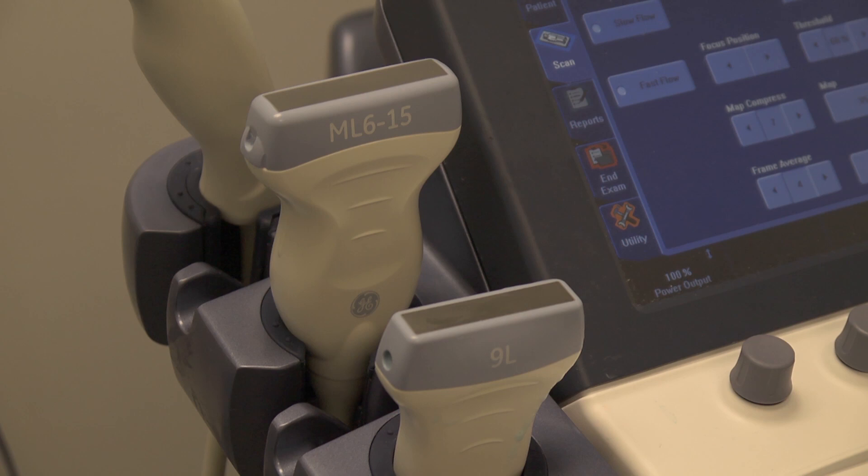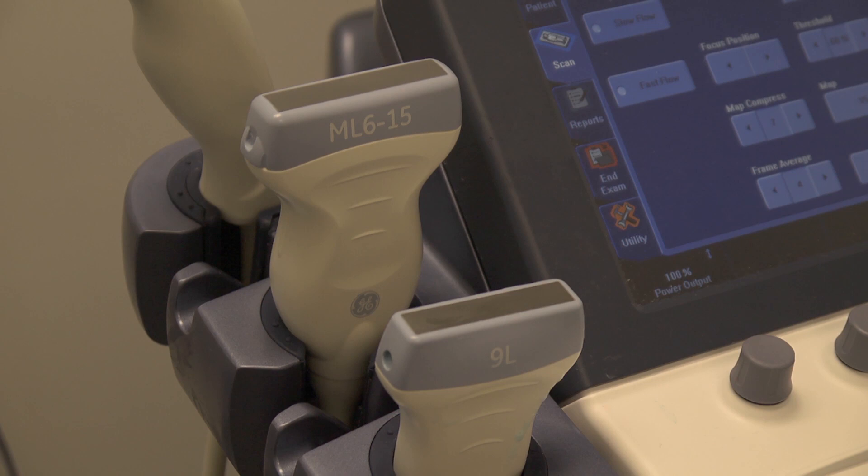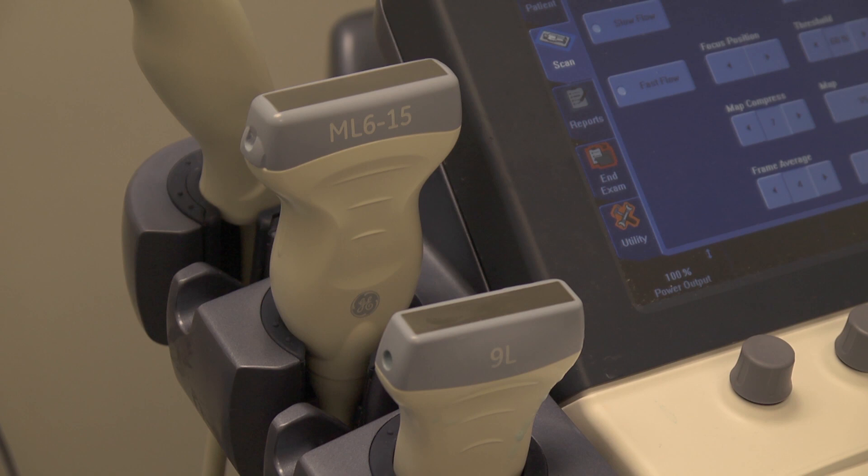These high frequencies therefore can give you a clue as to the use of these transducers. They are used to visualise superficial structures such as the thyroid, the breast and many tendons such as those in the shoulder, the wrist and the ankle.